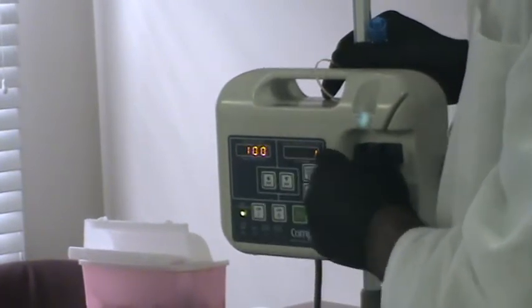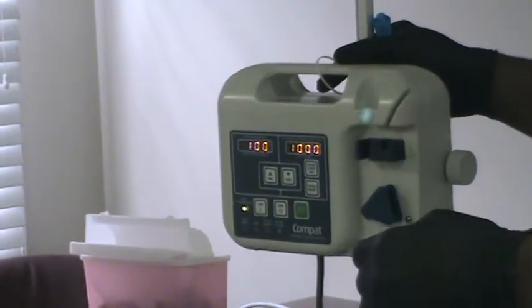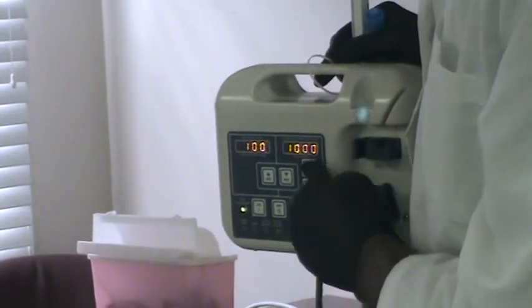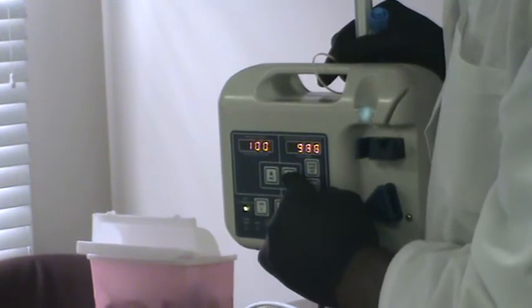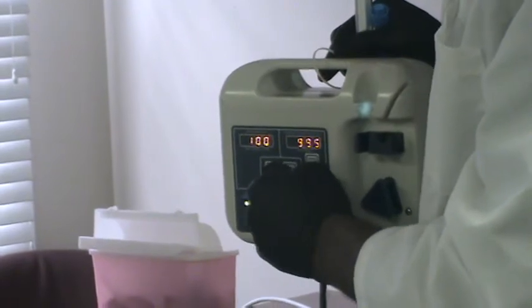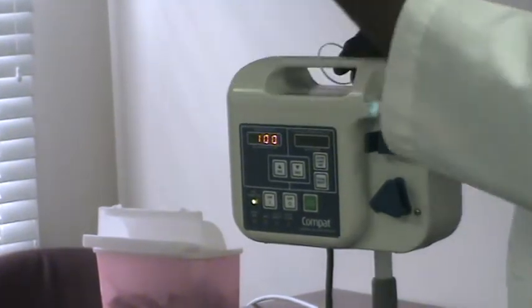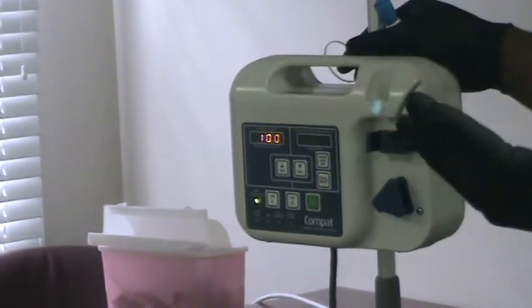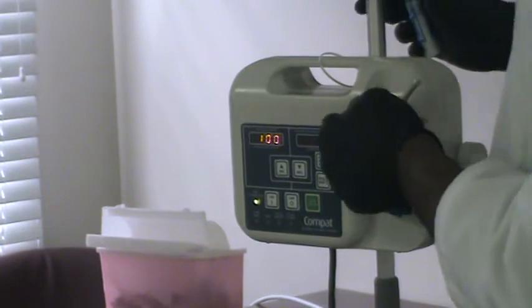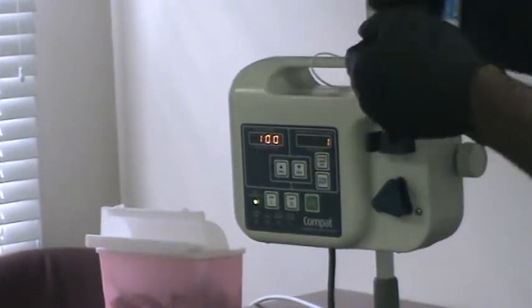Okay. This window you use to set the dose limit per day. According to her order, she's supposed to get 1,000 per day. When you press it, you can adjust the dose per day. And this can change. She can start out with 1,000 ml per day. Then the doctor realizes that's not sufficient for her nutritional needs according to her weight, and might increase it to 1,200. Then the day the order changes, you have to come and program 1,200 here. That way, we can monitor what she's getting daily.